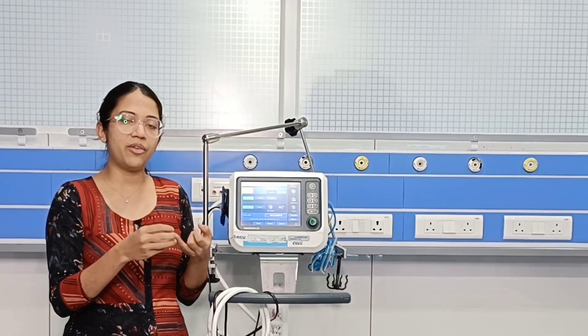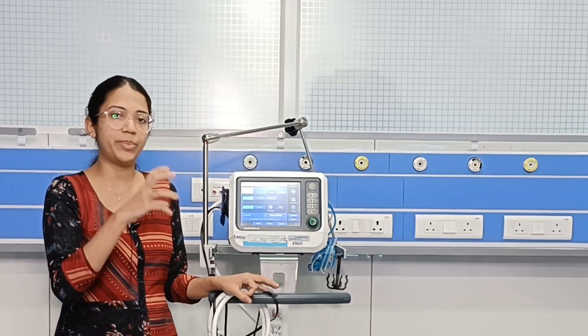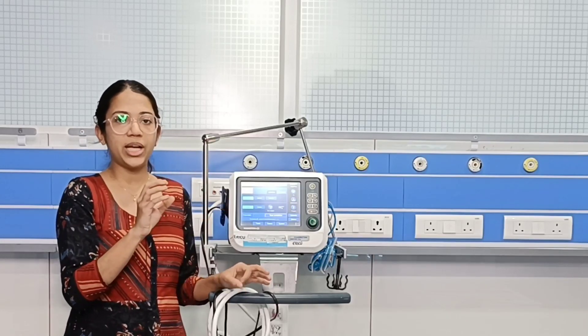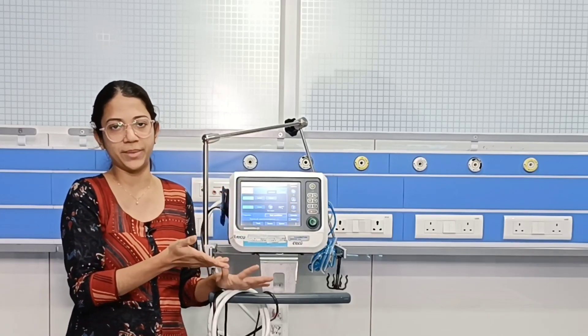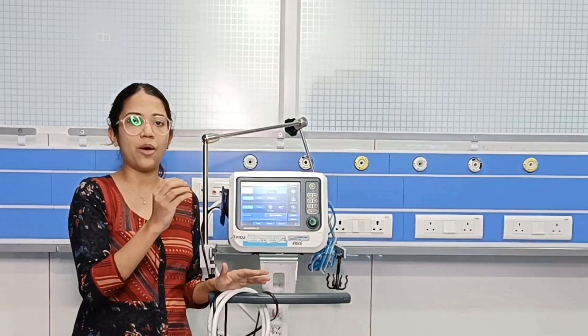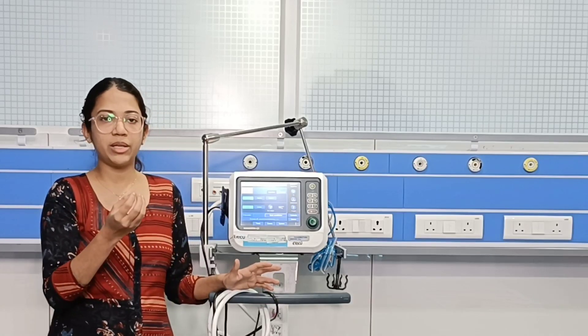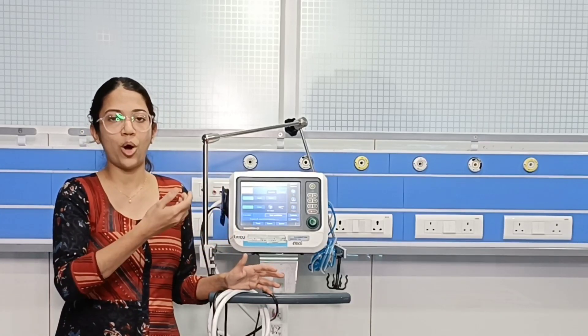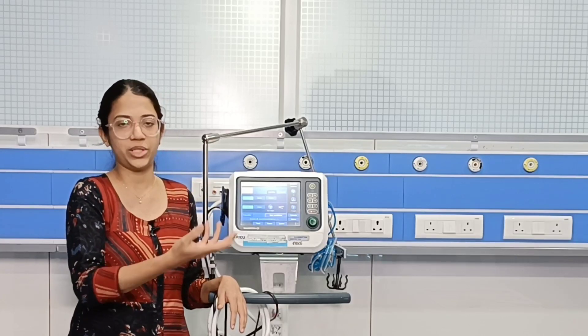Additionally, if the patient does not have enough effort to take a full breath, the ventilator supports it so we can still reach the target tidal volume, avoiding any ventilation-perfusion mismatch. It also prevents respiratory muscle atrophy and weakness — if a patient is completely sedated and paralyzed for a long time, the respiratory muscles will atrophy. Keeping the patient in this mode ensures the respiratory muscles remain active.